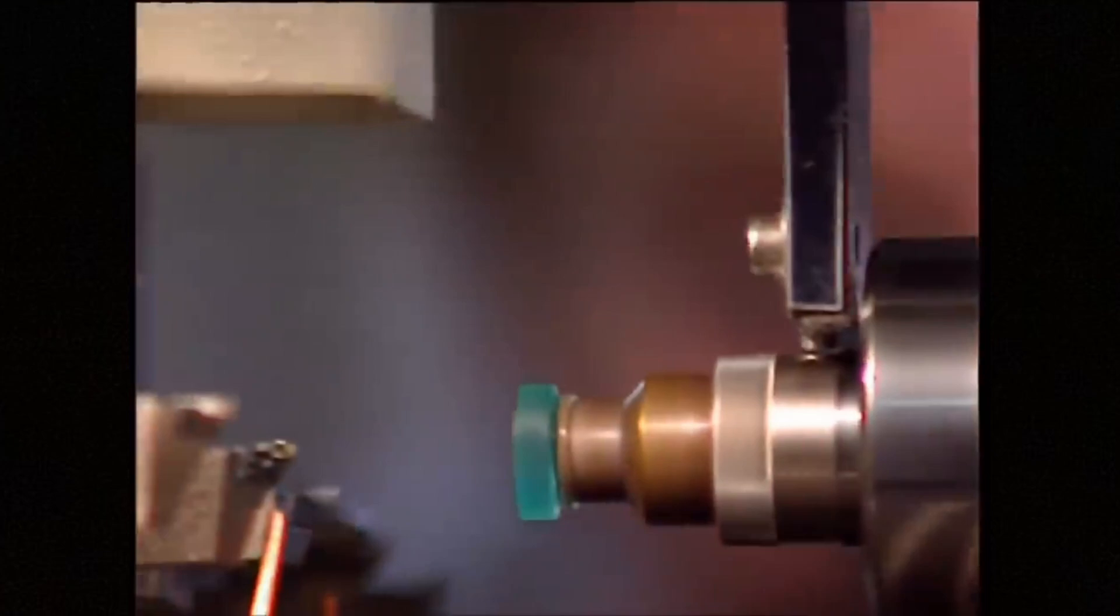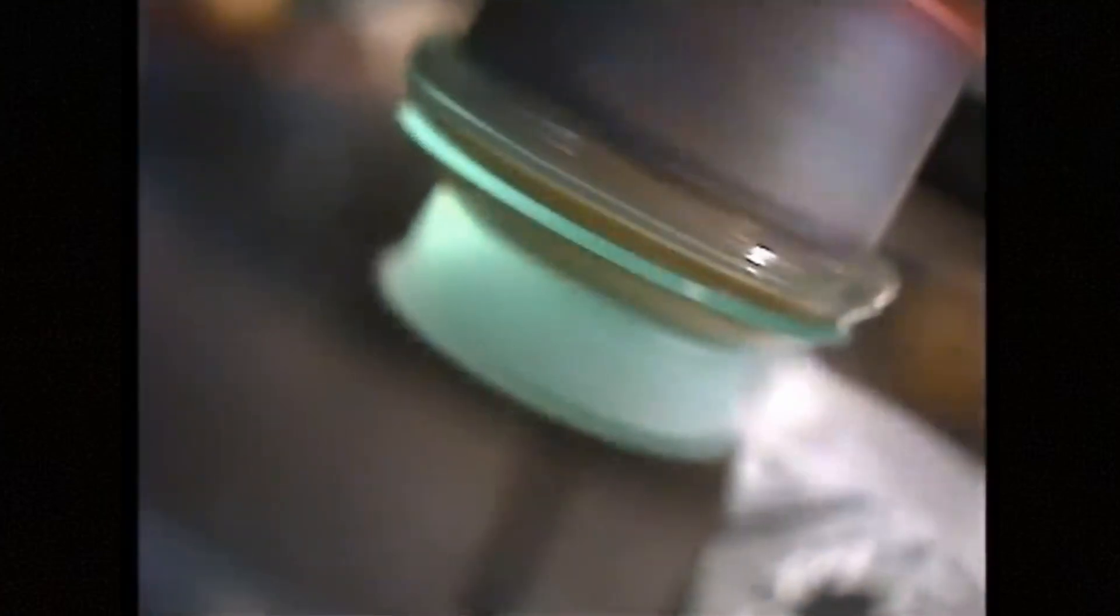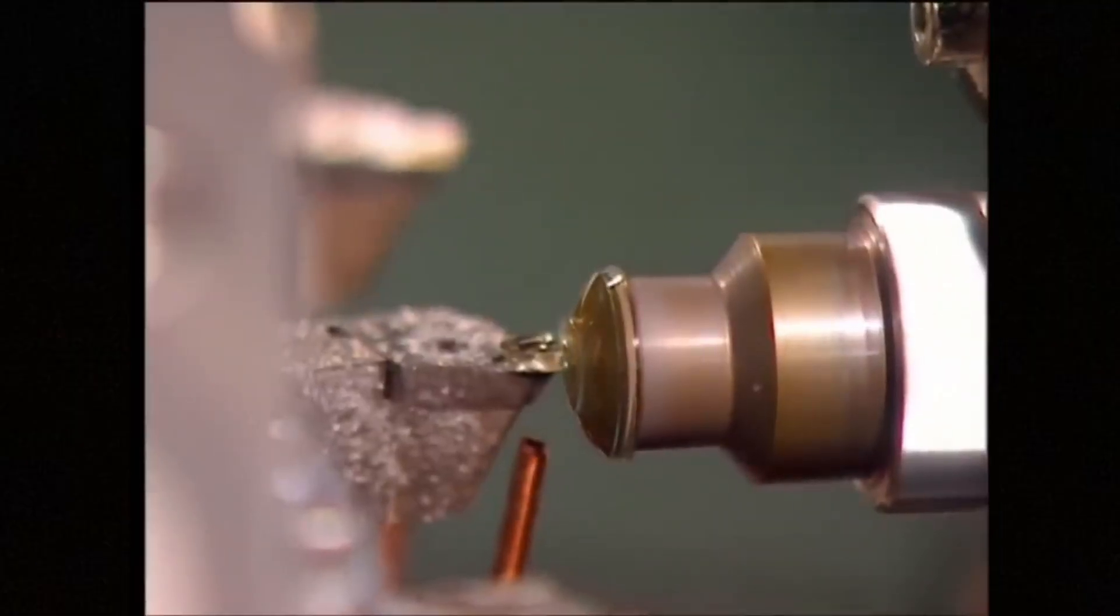There might be a few stages of this to fine tune the curvature of the lens. This also allows for custom contacts to be made for more unique eye prescriptions.